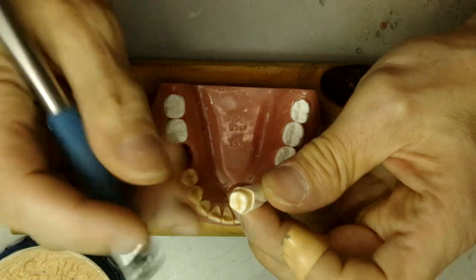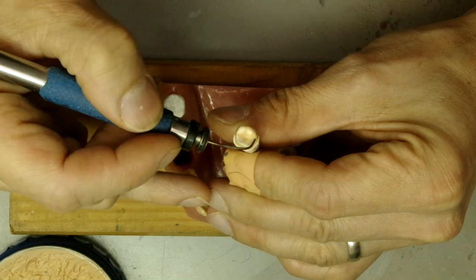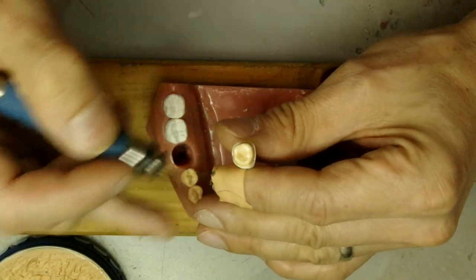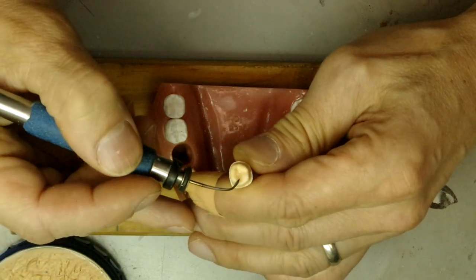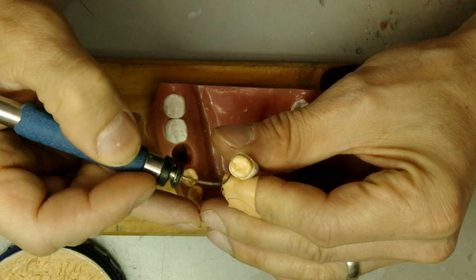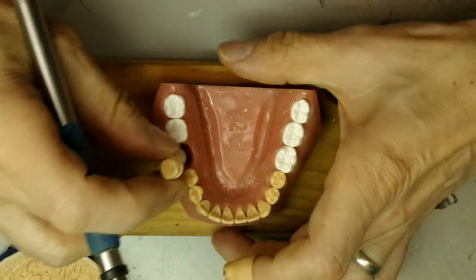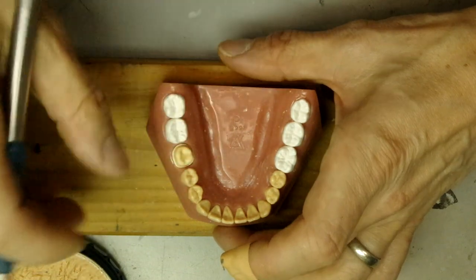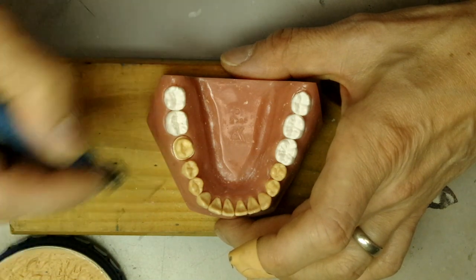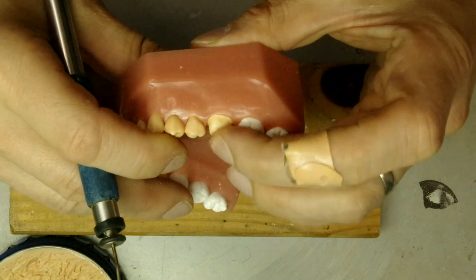Wherever it's thin, we're just going to add. Make sure the wax is not too hot when adding to the thin spots, because then it will just pull down in the middle and thin out again. Melt it on there. Once we've done that, we put it back and make sure we press this down so it's all the way down.